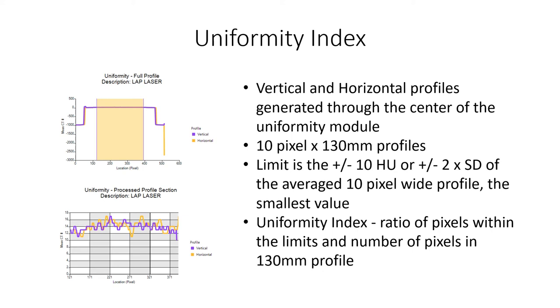The reported uniformity index is the fraction of pixels within the limits of plus or minus 10 Hounsfield units or two times the image noise, whichever is less. For qualitative evaluation of image uniformity, both profiles are displayed for the full image and the 130 mm processed section. This presentation offers the user an effective tool for visual indication of reconstruction artifacts.